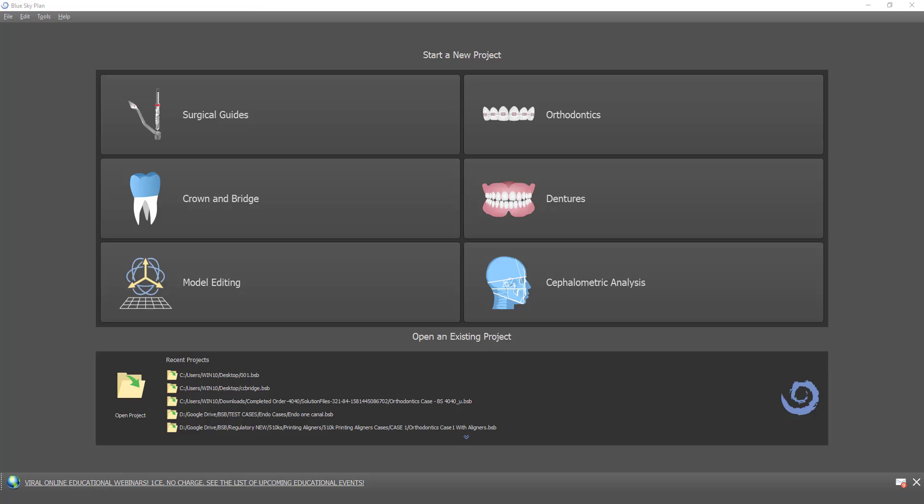This is Michael Saltzman and I'm the director of digital product at BlueSky Bio. In this tutorial video I want to demonstrate the functionality of creating an aligner trim curve and generating the machine code so that a milling machine can automatically trim the aligner. We're talking about a situation where the aligner was manufactured and now the milling machine is going to automatically trim the aligner.